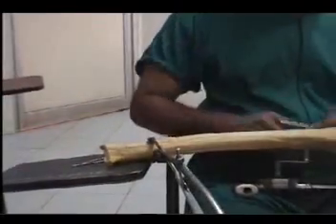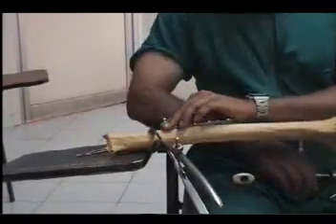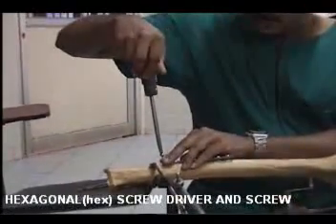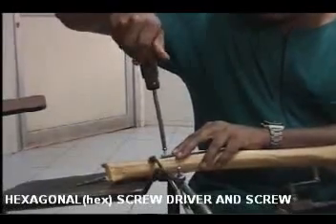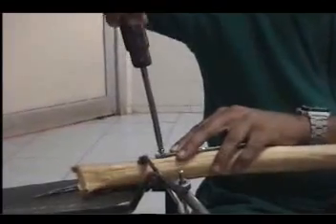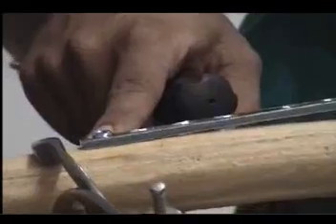You can either put the screw onto the bone to reduce it like a lag screw, or put the screw through the plate and using a screwdriver introduce the screw through the plate and into the bone. Once this is done, you have a secure fixation of the screw to the plate.